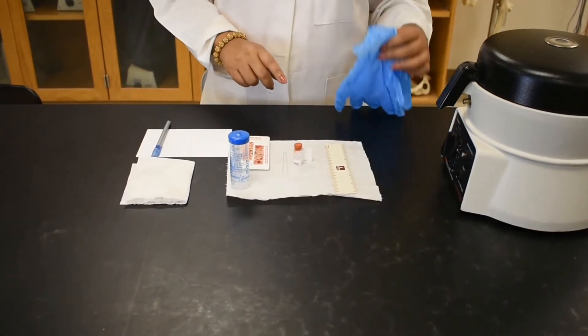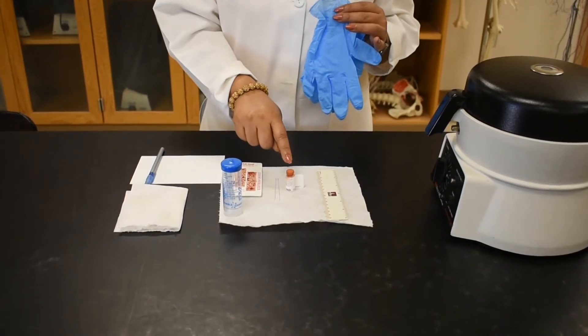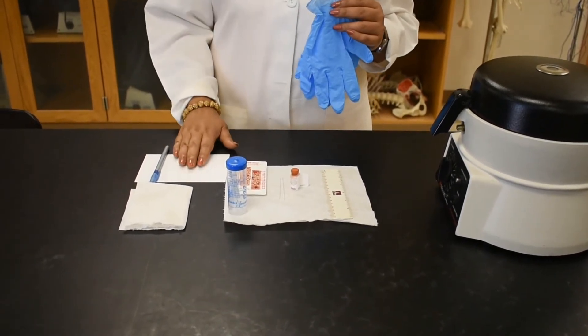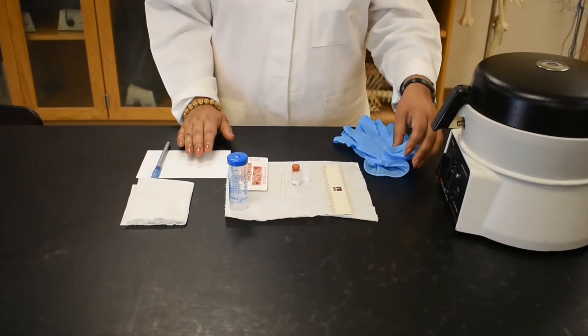Do not forget gloves because you will be handling a biohazard sample, the blood sample, and also of course you need paper and pencil to write down your recordings or data.